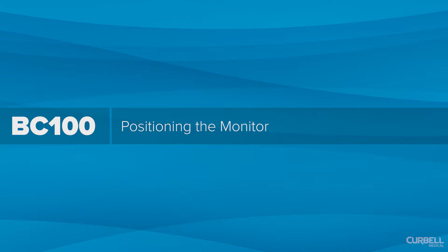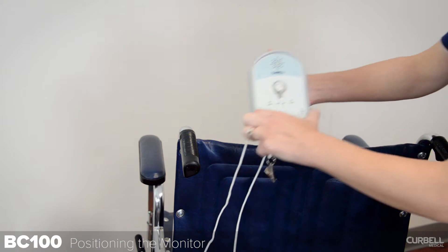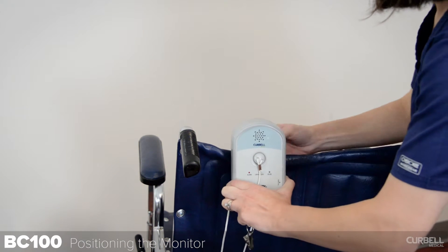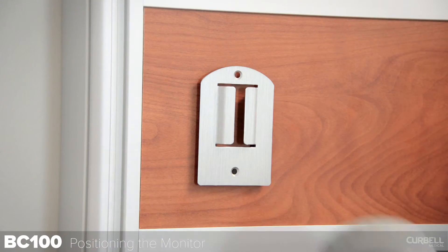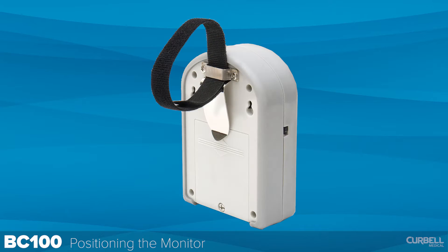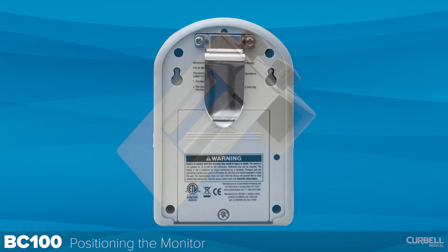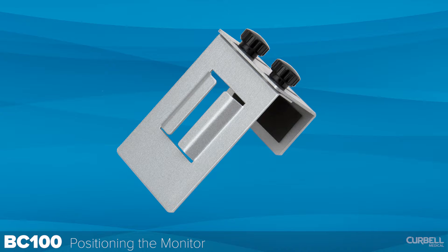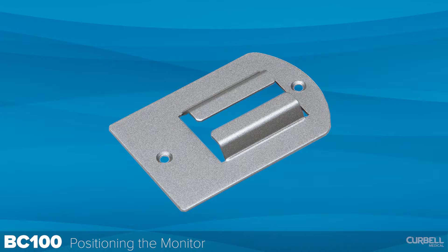Positioning the monitor. Make sure that the monitor is securely mounted to the wheelchair, headboard, footboard, or wall. The monitor can be mounted in several different ways using the mounting clip on the back of the unit, the velcro loop, the wall mount screws and sleeves using the keyhole slots, the bed mounting bracket, the magnetic mounting bracket, or the wall mounting bracket.